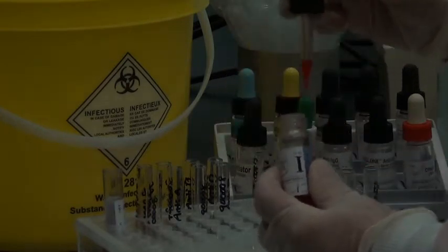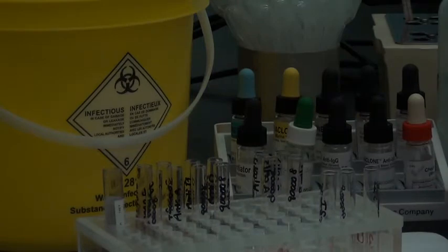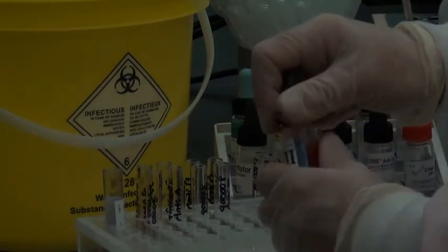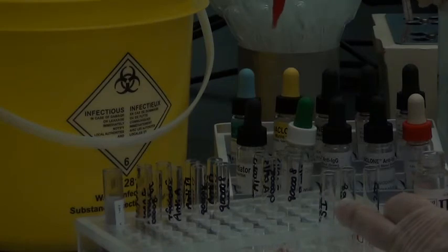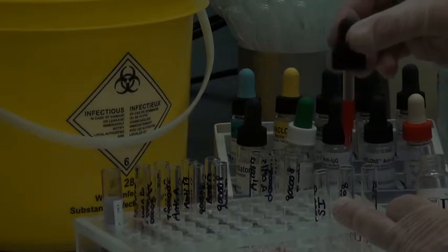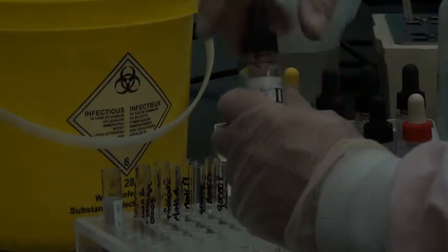And grab your cell and pipette it into your tube. Nice vertical pipetting, and ensure that you're holding the pipette well above the lip of the tube. Another technique that we sometimes use here at SAIT as well when we're pipetting is to touch the tube. I'm standing on the ground, I've got running shoes on. Touch the tube with my hand and pipette in, just because that seems to help alleviate some of the static we see here at SAIT, because our labs are very, very dry.